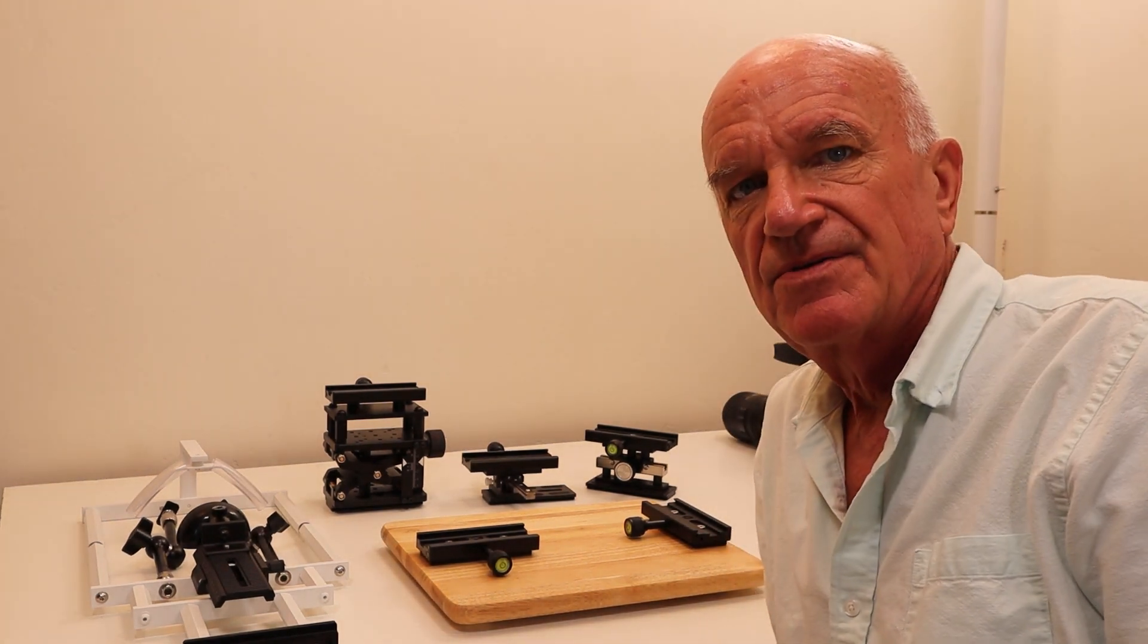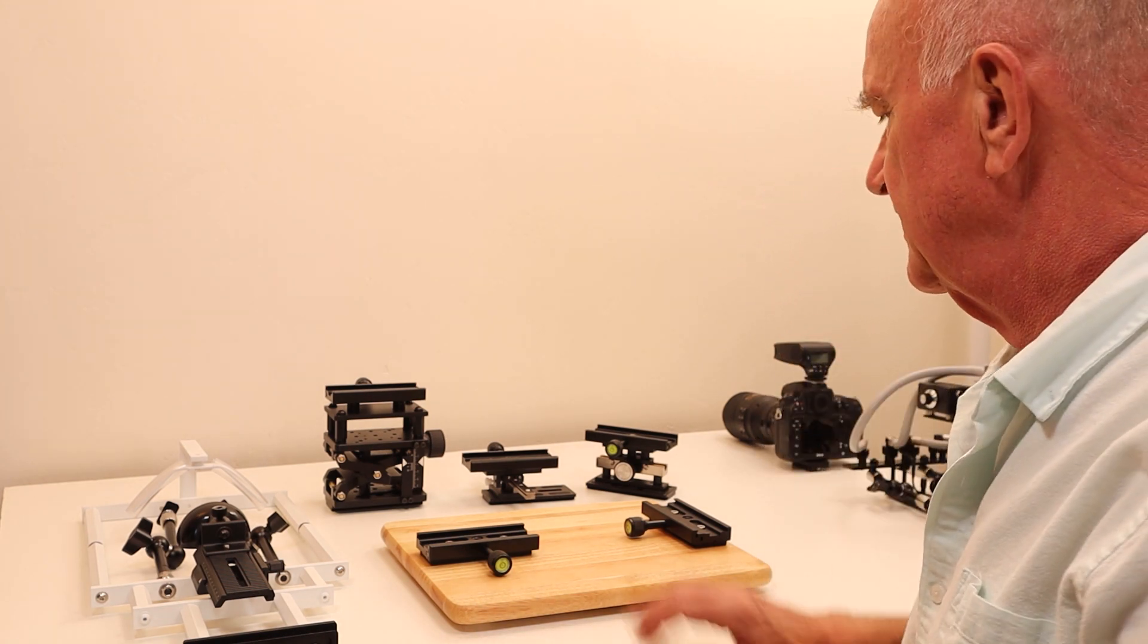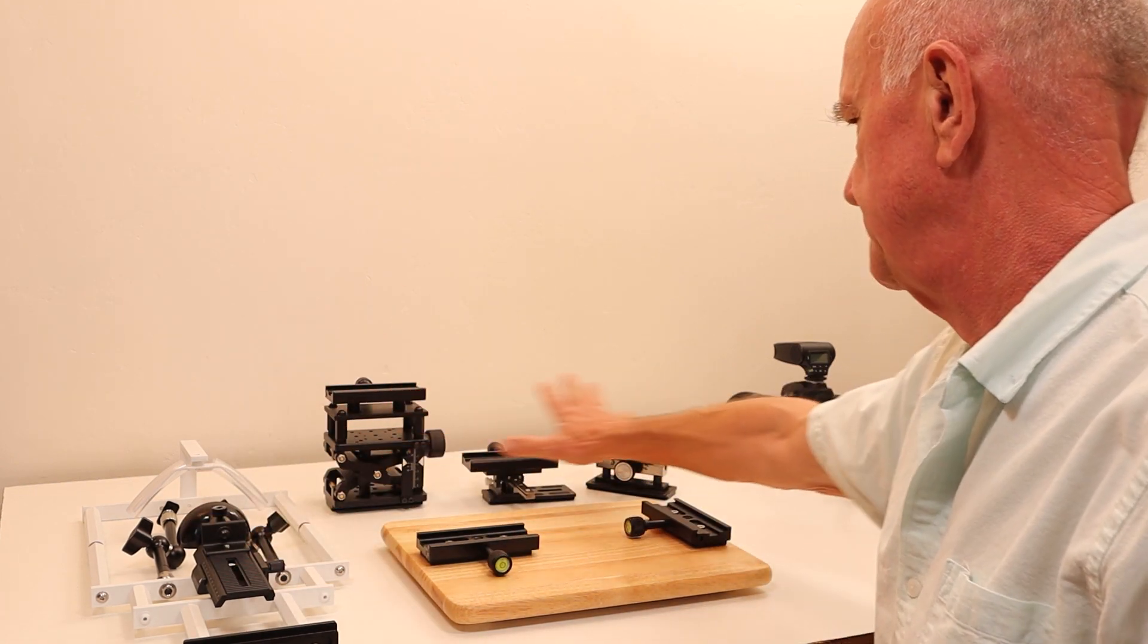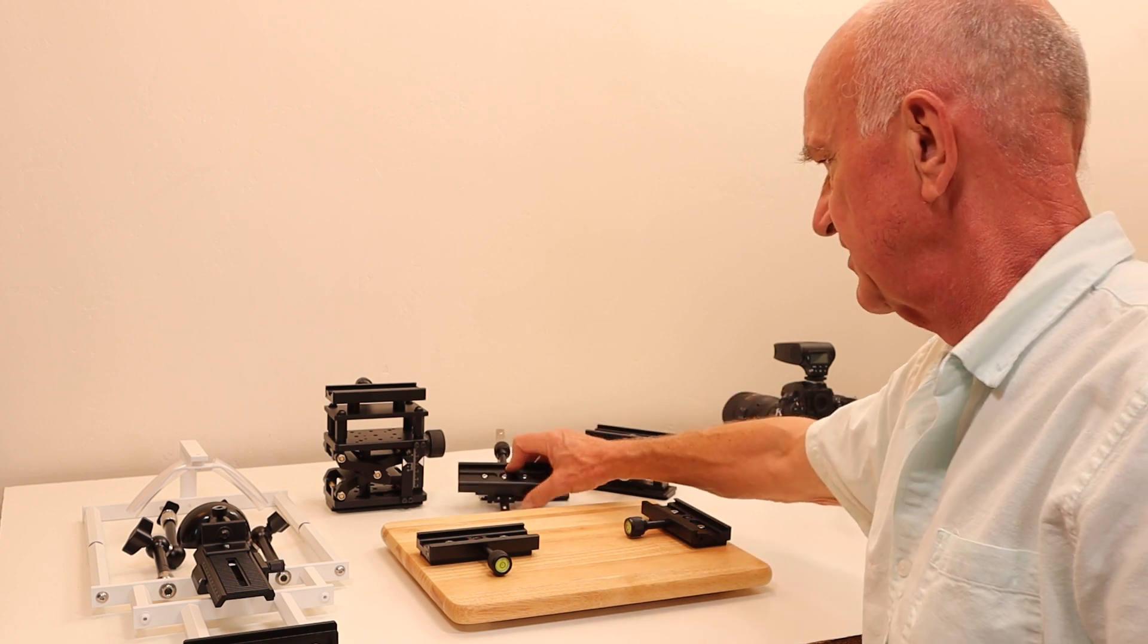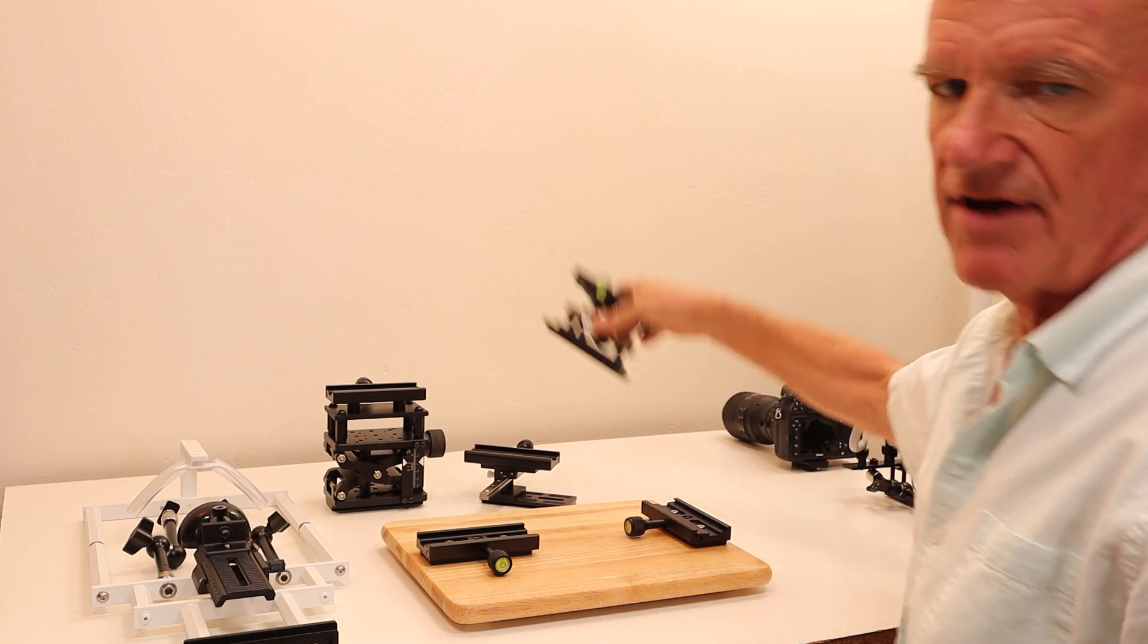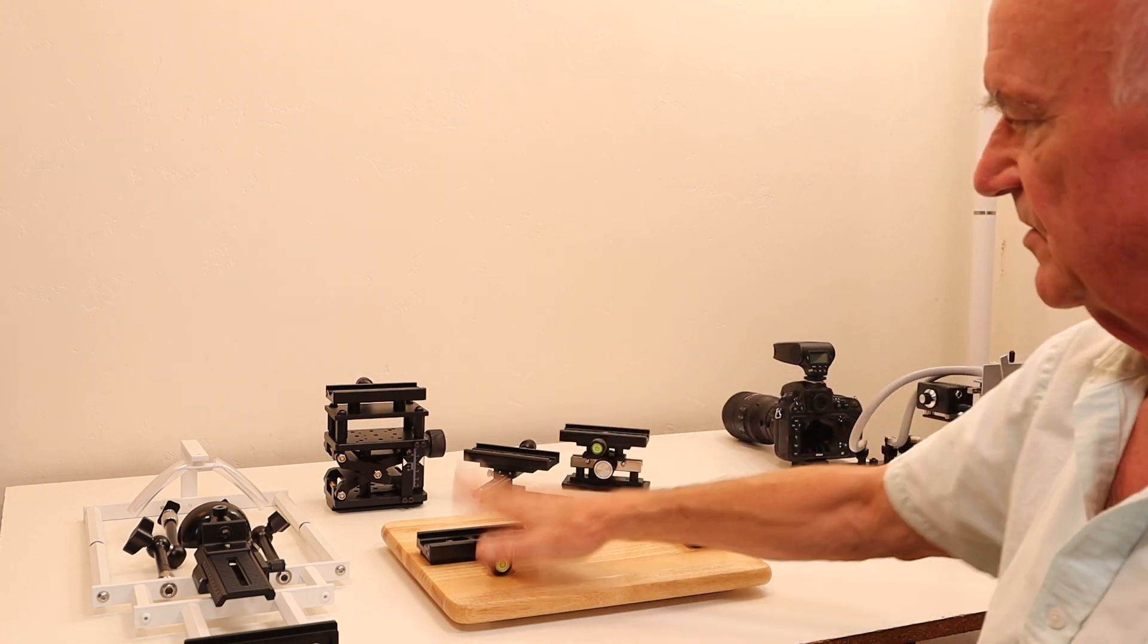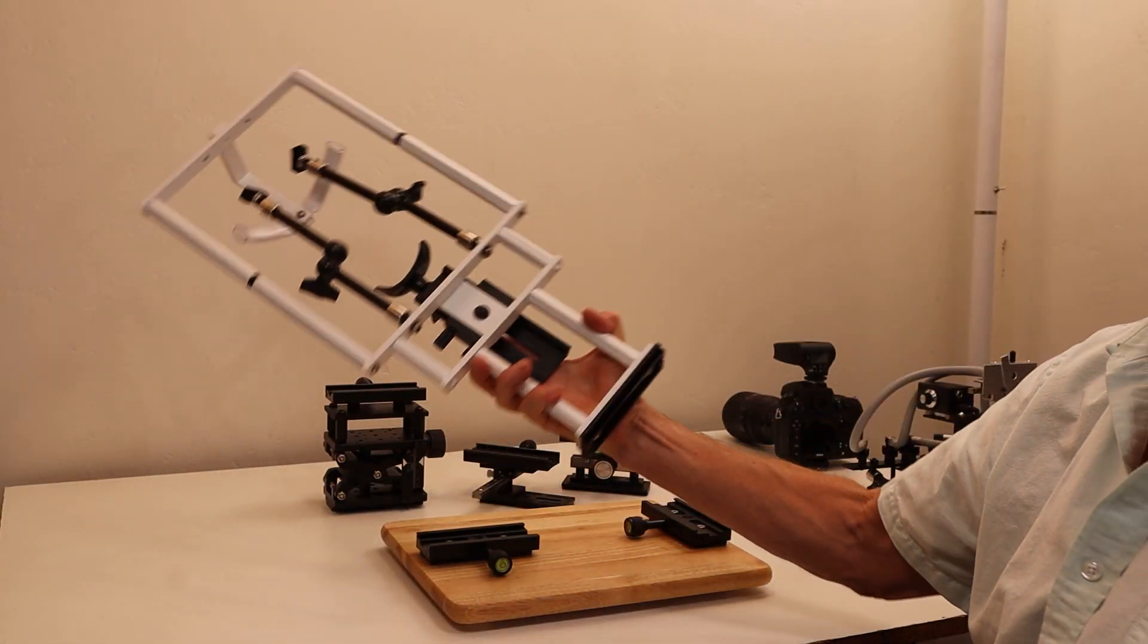In this video I will show how to set up the new chin rest. There are five components: the base, the chin rest itself, and then the three positioners - height adjuster, lateral slider, and the focus track. These are the three XYZ positioning components.